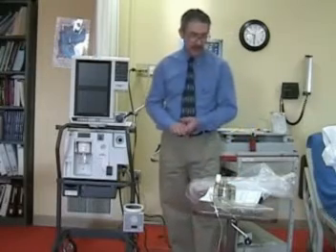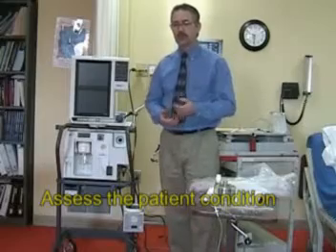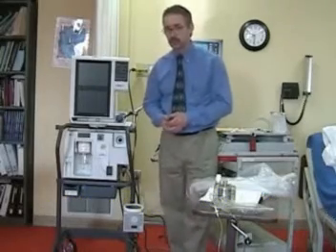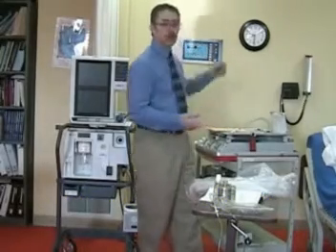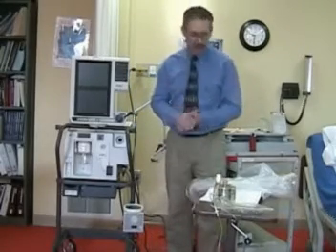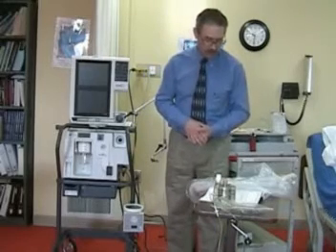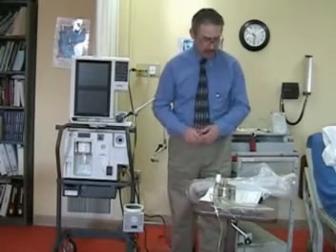Then you'll assess the oxygenation and cardiac status. Oxygenation can be done with oximetry and arterial blood gases, and with the cardiac status, you want to look at the cardiac monitors and see what the blood pressure, rhythms, and those things are being displayed.